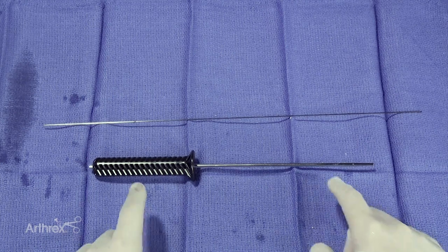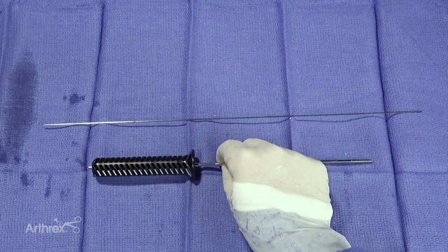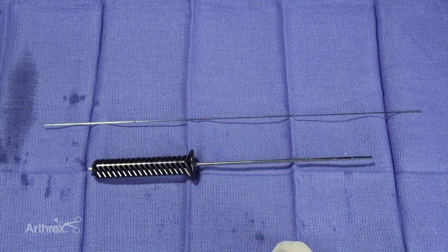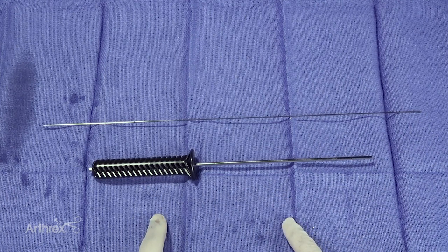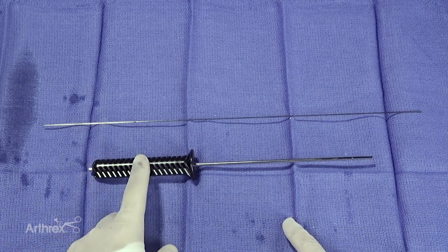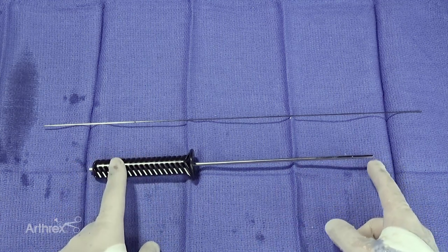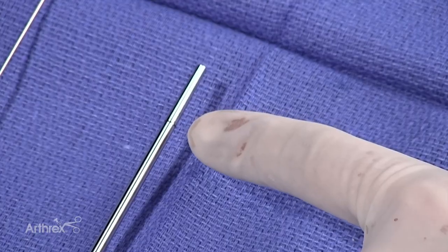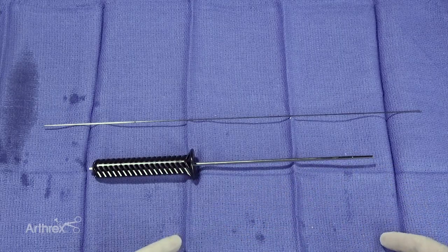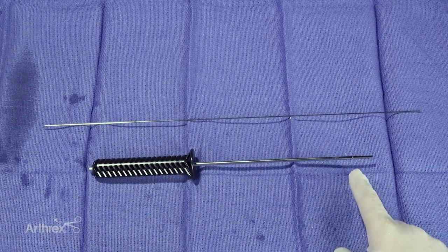This is the kit. It comes with two things: your notcher/dilator, and your insertable trocar tip wire. A key feature is that the guide allows you to insert parallel and collinear to your bone plug. There's a notch mark at about 20 millimeters, so you can be sure you've docked to the depth of a 20 millimeter bone plug.